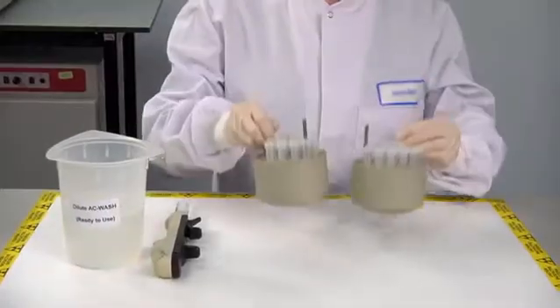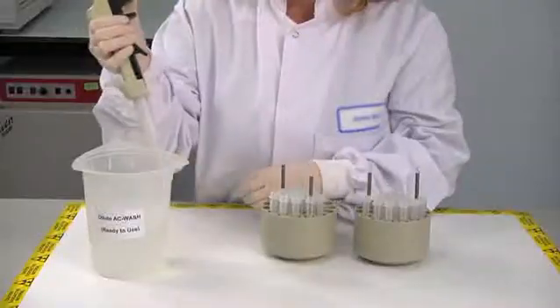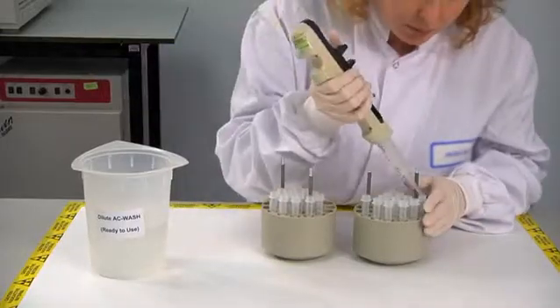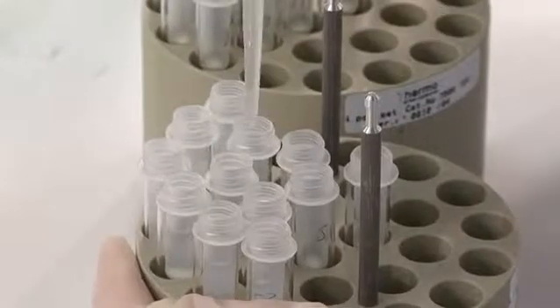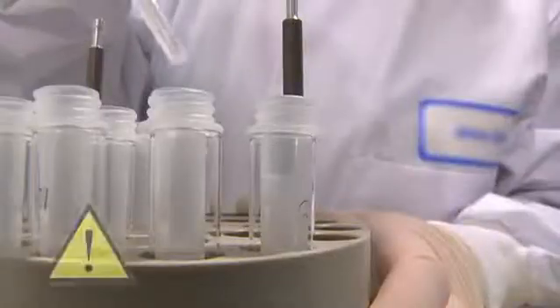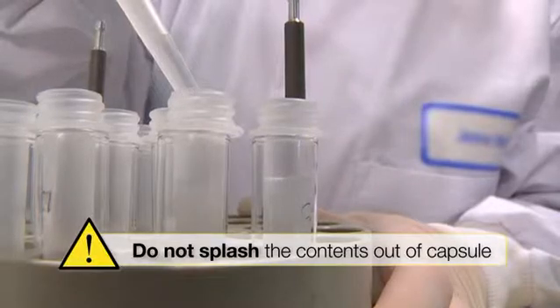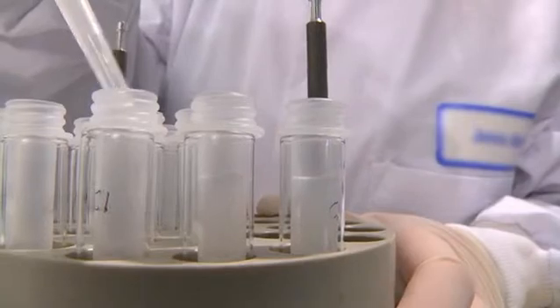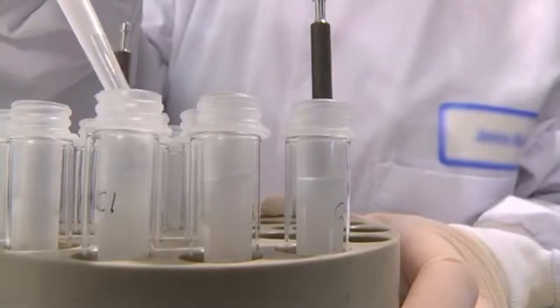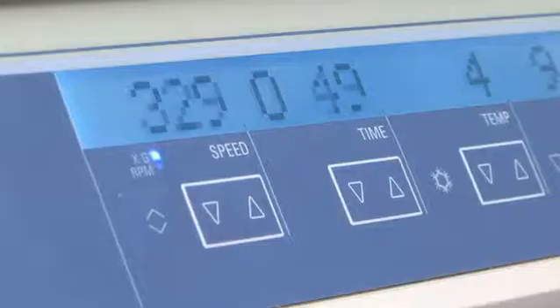Step 6: Add 500 microliters of diluted wash solution to each immunocapsule. Add carefully to avoid the solid phase splashing out of the immunocapsule. This is best done by pipetting around the inside edge of the immunocapsule as shown. Centrifuge at between 500 and 1000G for 1 minute.